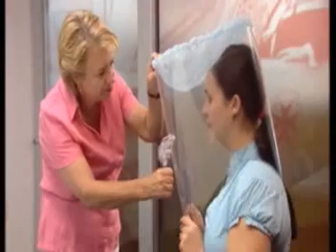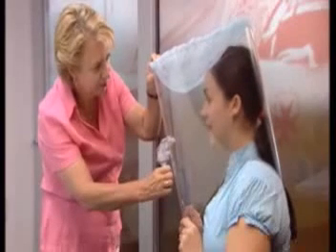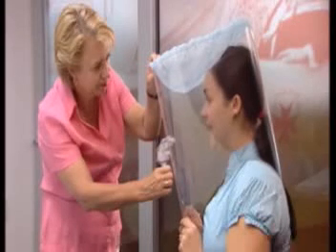Prior to commencing the test, the ability of the person to taste the solution is determined. The hood is placed over the head and a low concentration solution is atomized into the hood via the access window. The tester continues to spray the solution into the hood until the person being tested can taste it. The number of sprays required is then documented, the result being rounded up to the nearest ten. If the person is unable to taste the solution after 30 sprays, an alternate testing solution will be required.